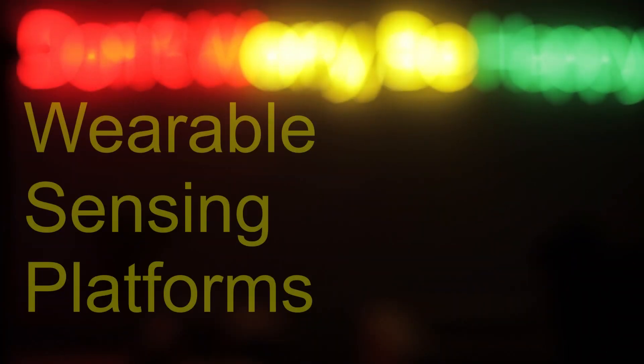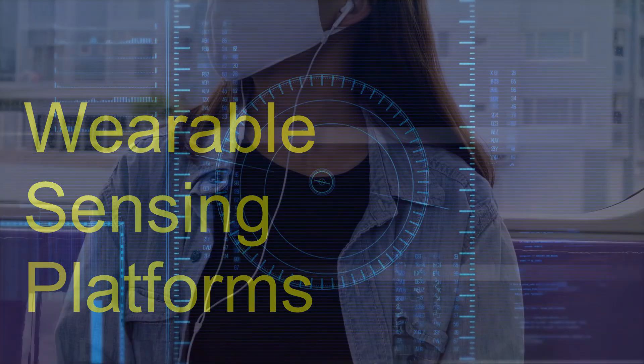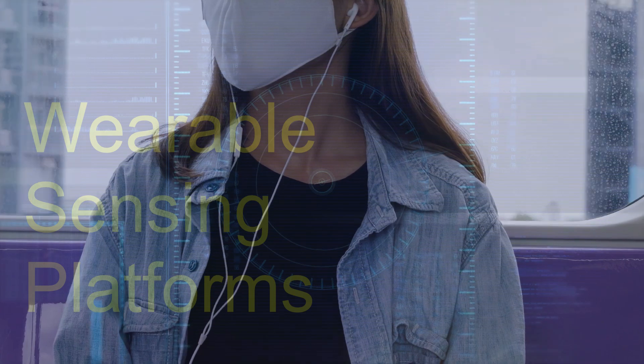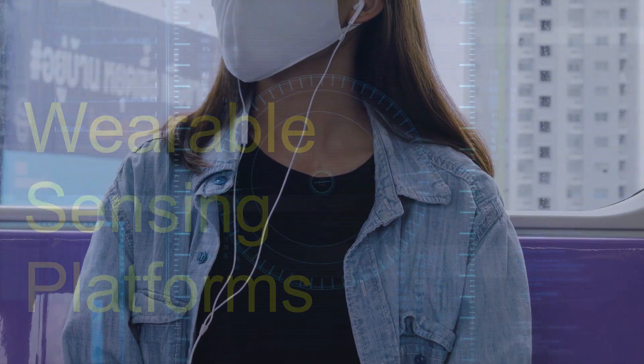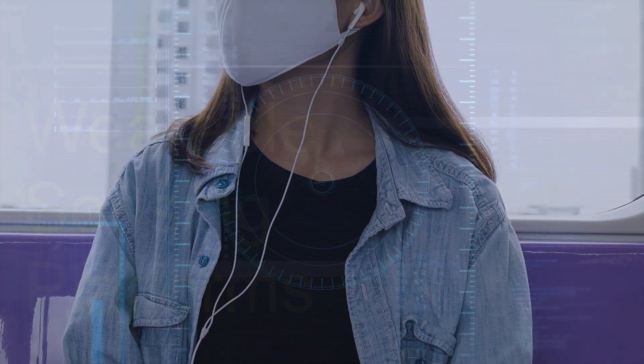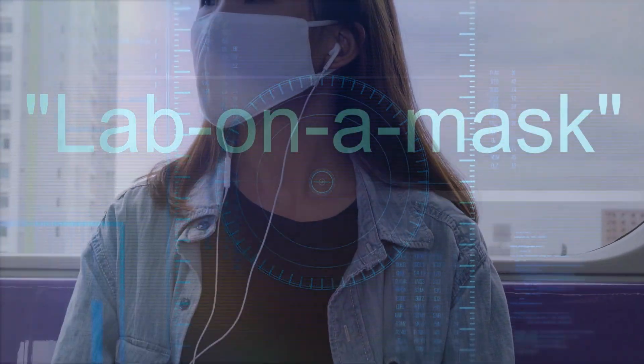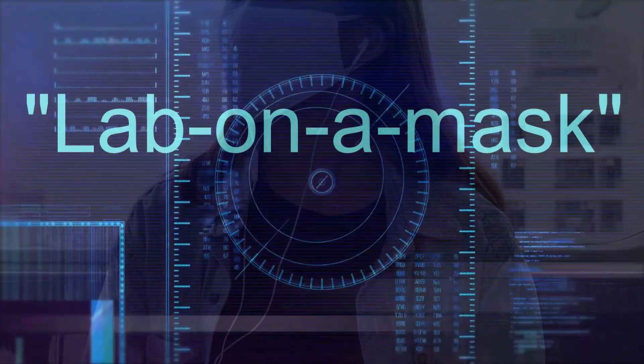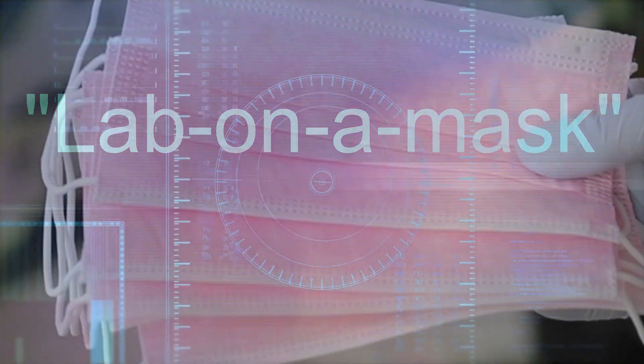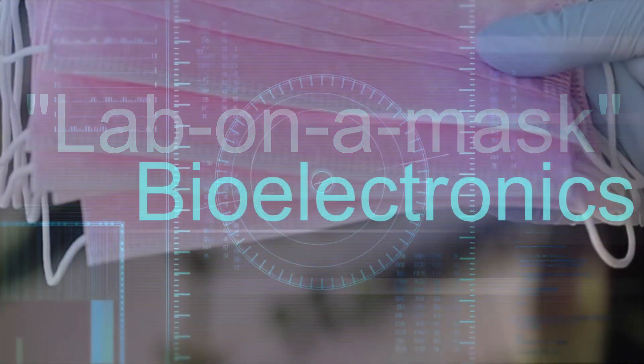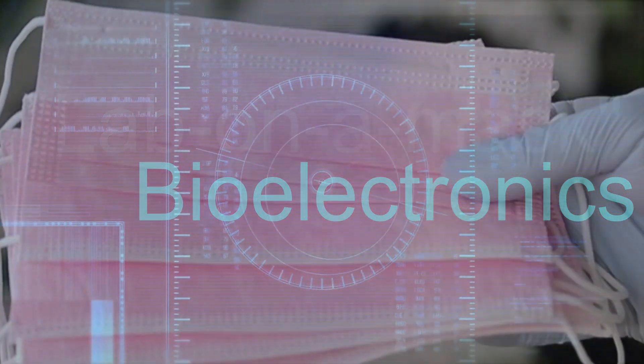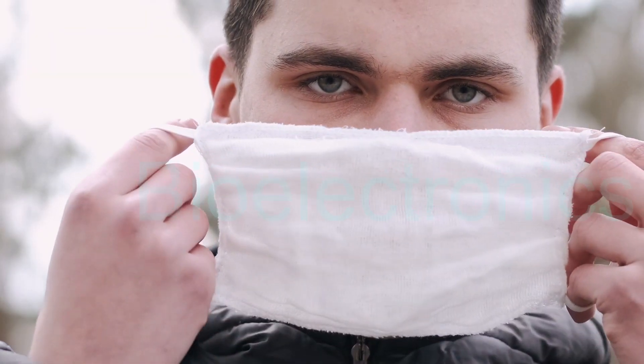It is extremely exciting, the life-changing end-to-end monitoring platform of this mask-based sensor, which can be discreetly stuck on the face to monitor glucose. Such a new energy-sustainable lab-on-mask concept serves as a foundational example showing the new bioelectroanalytical platform for various metabolite compounds and practical settings toward wearable monitoring applications for sustainable healthcare systems.